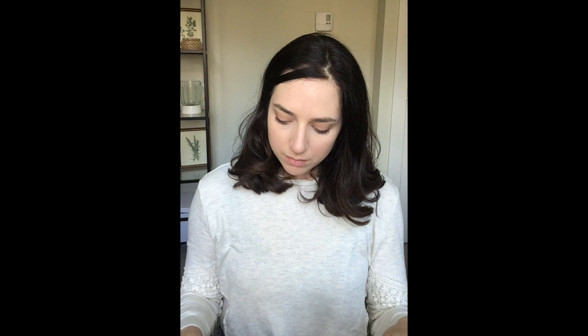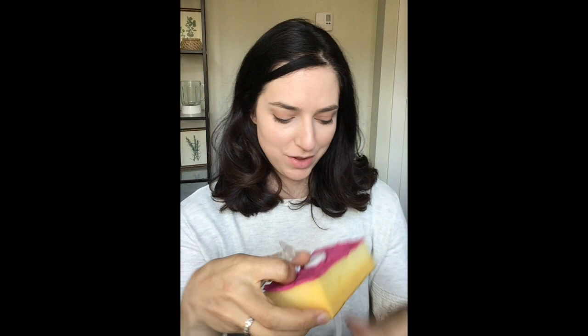You're probably wondering whether you have a bumper or a balloon. The easiest way to know is to look at your tube — you can tell based on the ports on the other end. One of these has a balloon port for filling up the balloon; if you have this on your tube, then you have a balloon. If you don't have it — like this tube, which just has ports for feeding or flushing — there is no balloon port, and therefore this tube would not have a balloon. That's an example of a bumper tube.